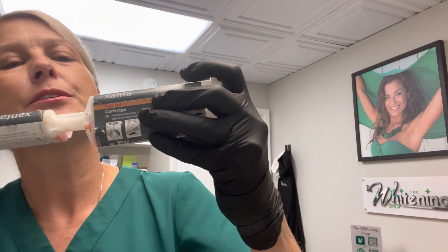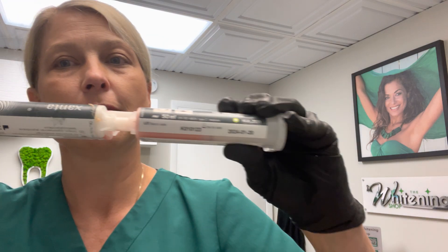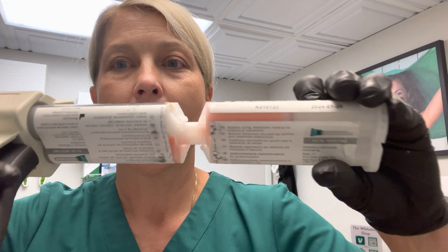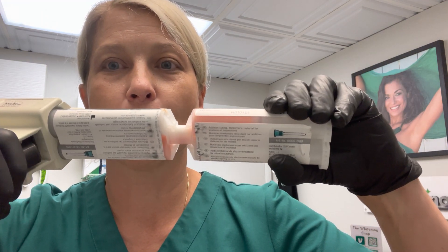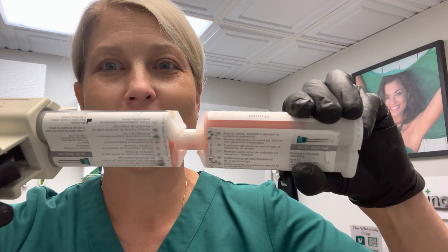I'm going to come up close so you can see it. See that? Then what you'll do is you'll open up the other cartridge. You want to bleed it first — we've already done that. And I'm going to connect the two. I'll just basically take the cartridge, just like that, and push it down right into it. See here?